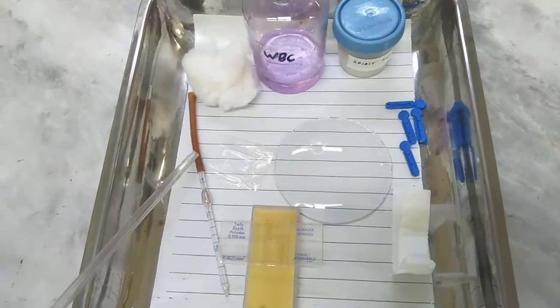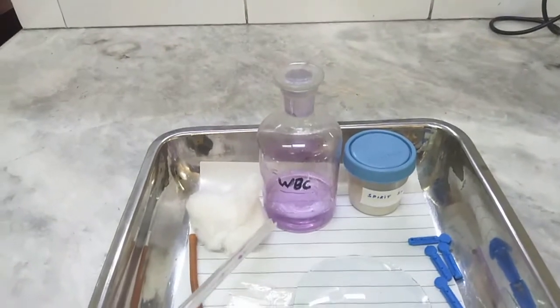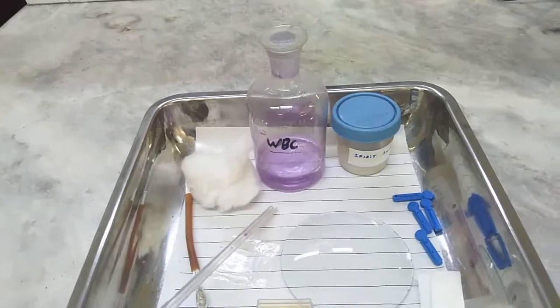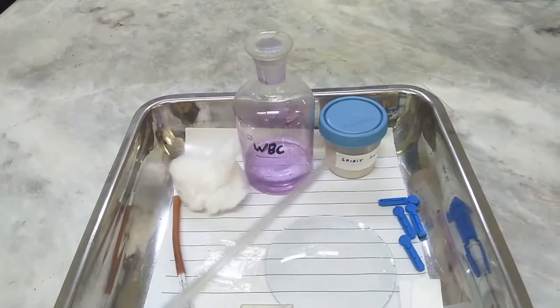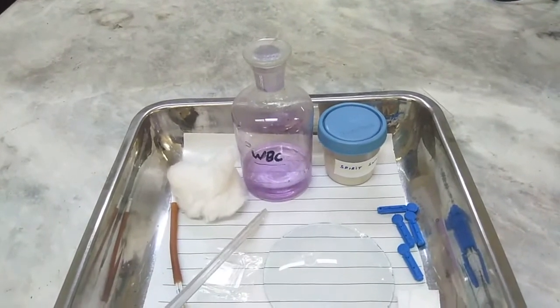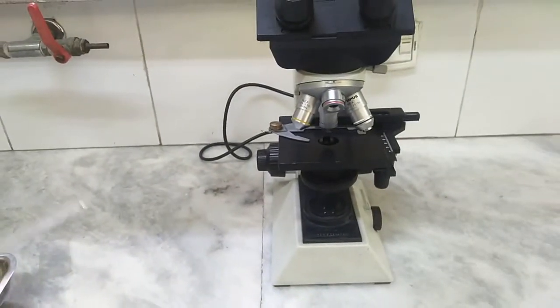This is the Turk's fluid which will be used in this practical. It is a purplish colored fluid that is already made — you don't have to mix it yourself. Make sure that it is labeled as WBC fluid or as Turk's fluid. The last thing needed is a functioning microscope. That is the apparatus which will be used in this practical.